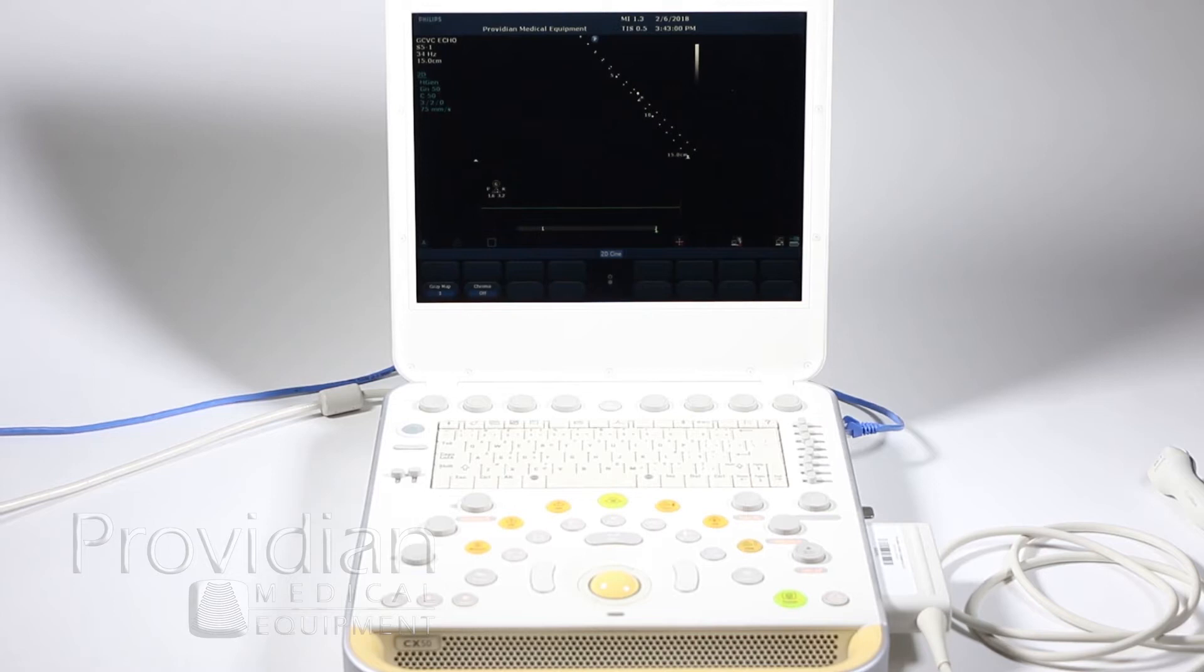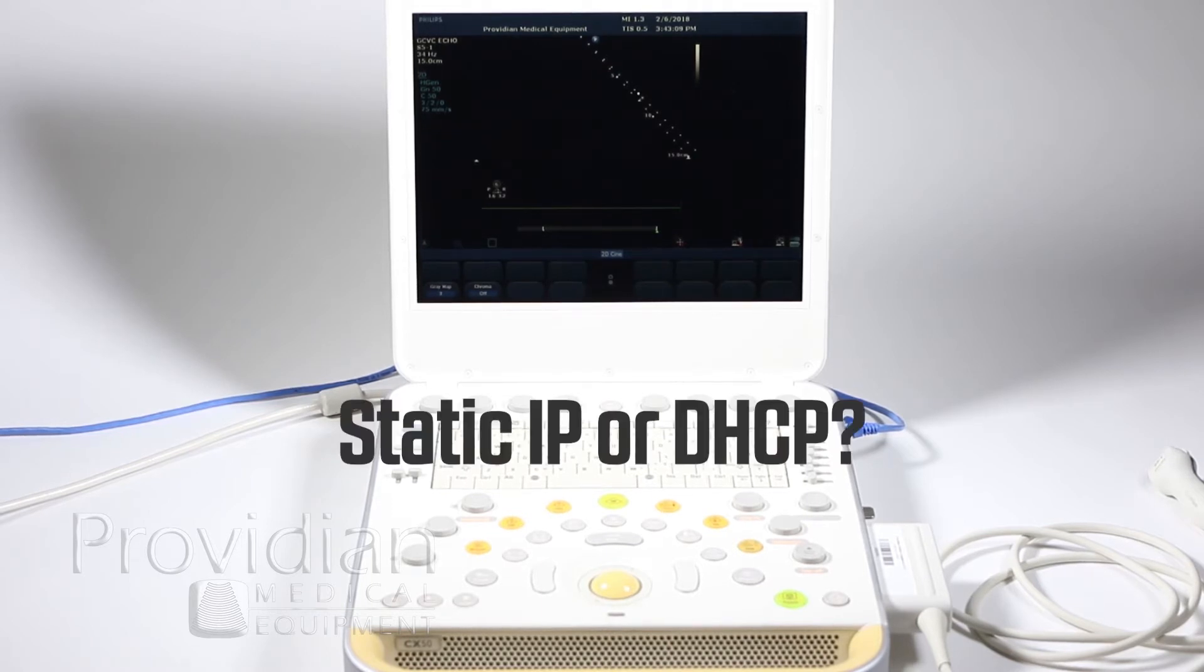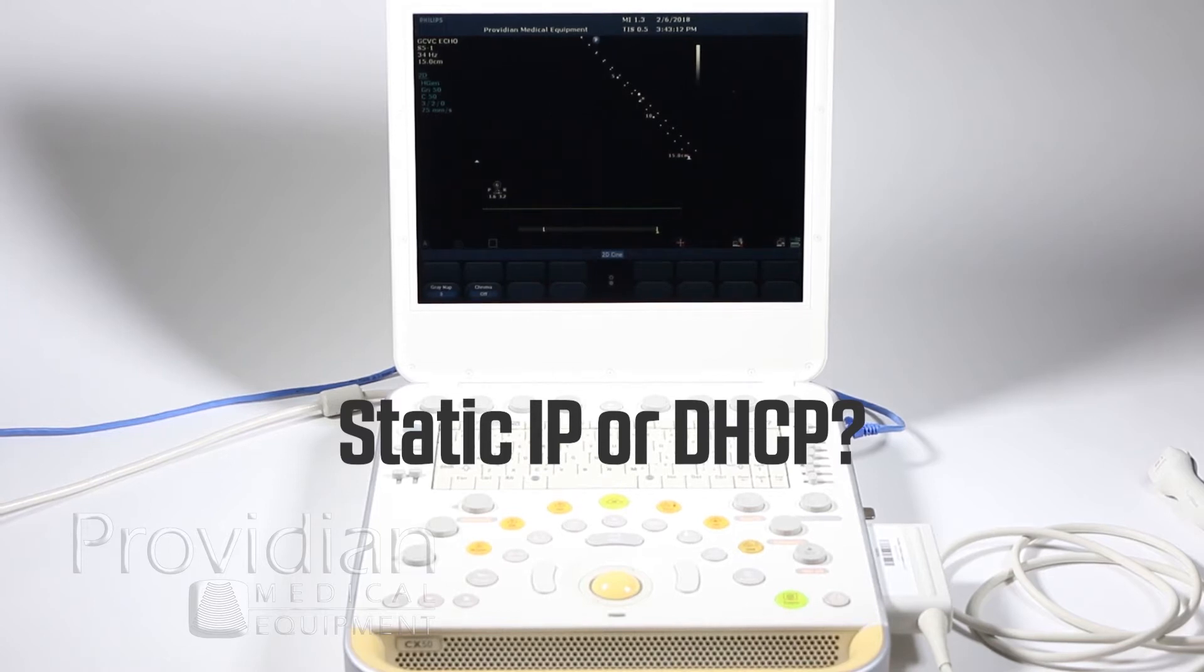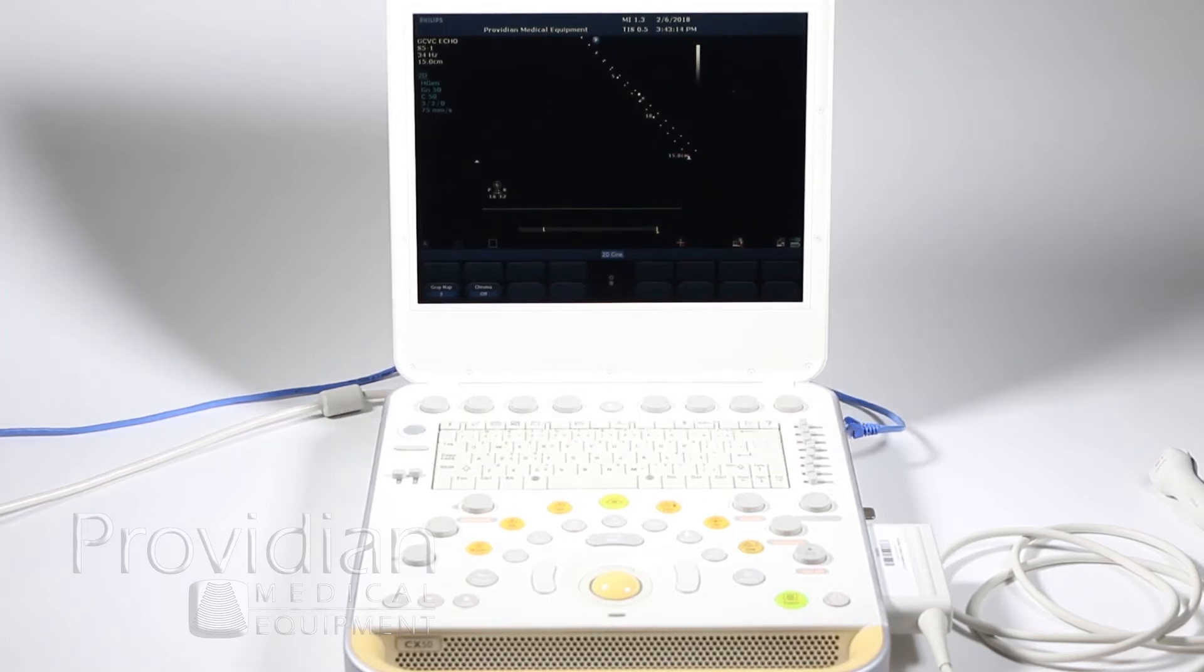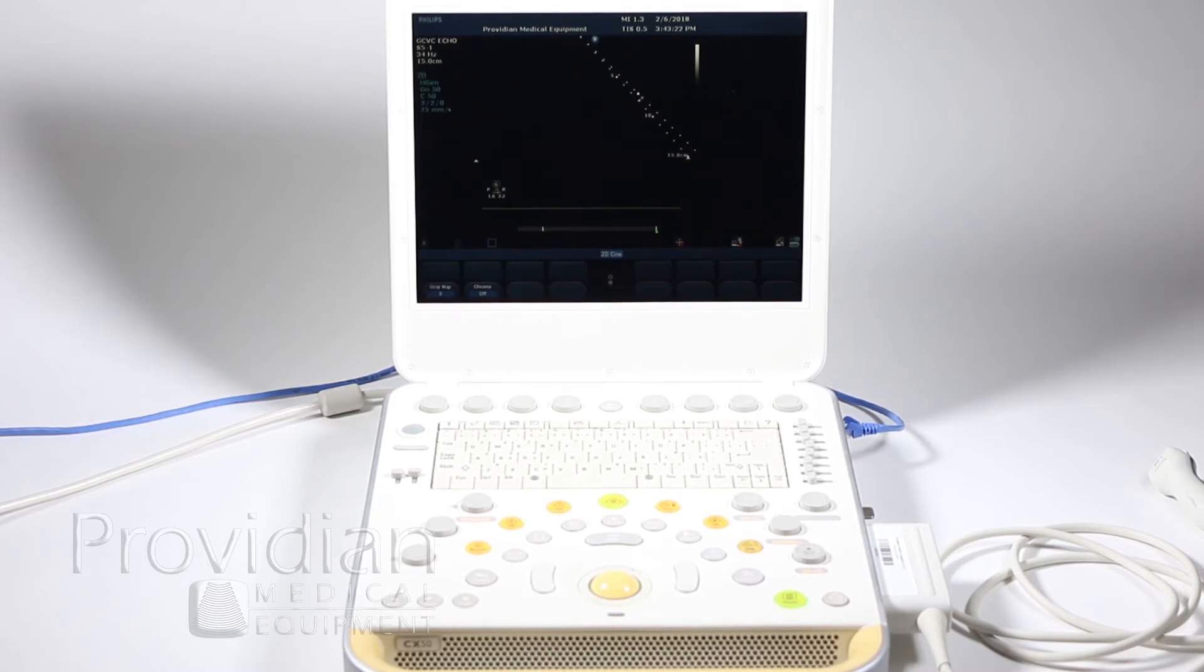Before you get started, there's really no point in doing anything until you talk to your IT person and ask them if you need something called DHCP or a static IP address. They'll tell you one or the other. If it's a static IP address, they'll give you an IP address, subnet mask, and a default gateway. If you're using DHCP, no worries, you're good to go.